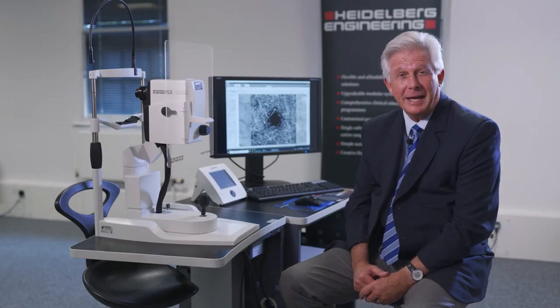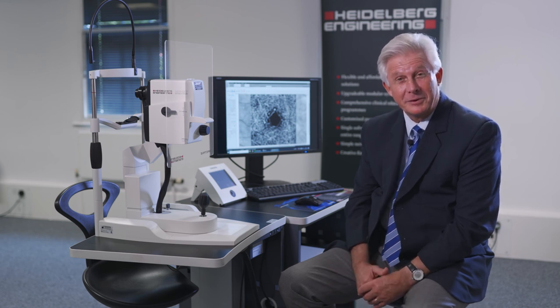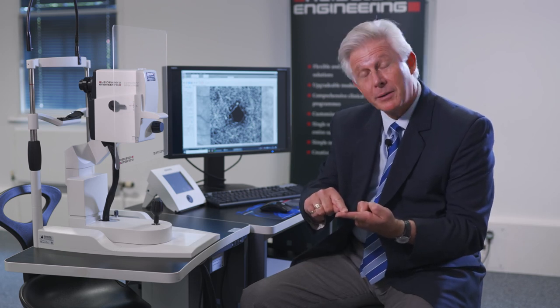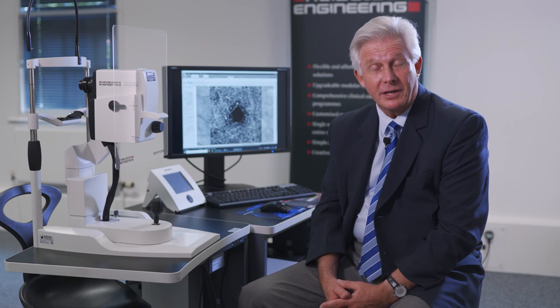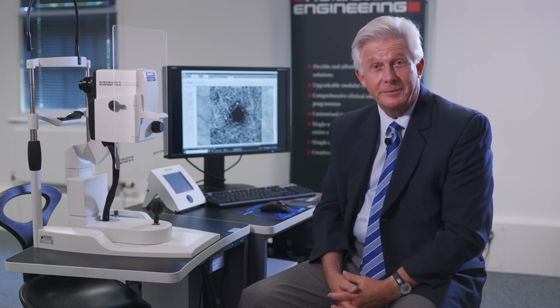Always remember: OCTA is really measuring physiology. We're trying to capture a consistently inconsistent moving entity — red blood cells going through capillaries — which is quite challenging technically. We like to think we have Spectralis DNA: you need the resolution to image those capillaries, TrueTrack live eye tracking to stay on that capillary, and sufficient sampling because of the inconsistent flow. Finally, you need reproducible results because you want to track follow-up and look for change over time. All of these components combined are necessary for good OCTA imaging.